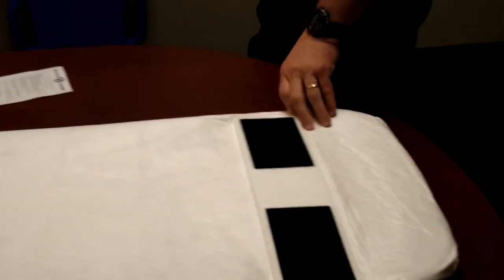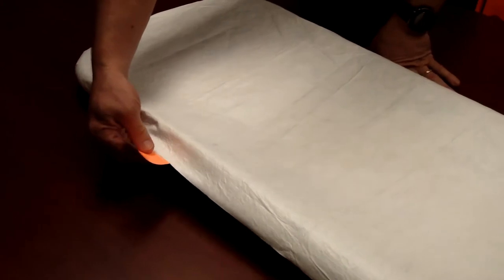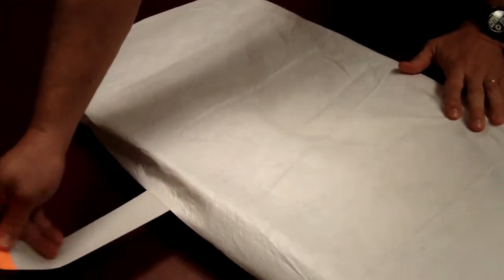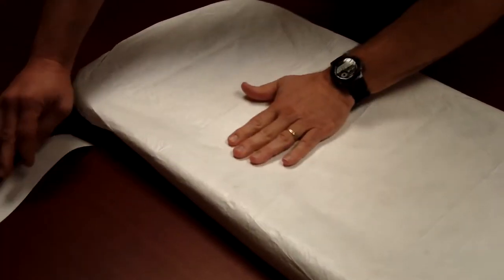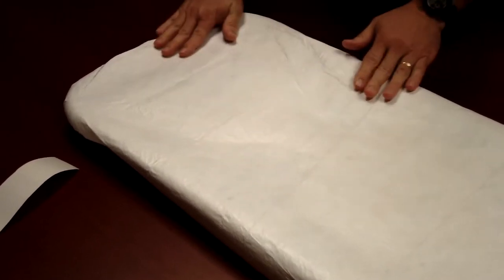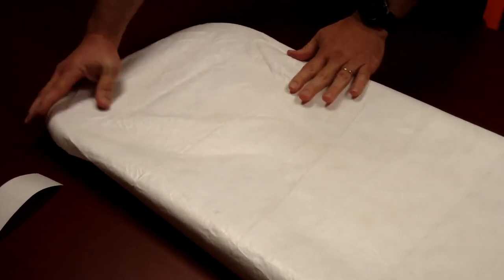Now down at the foot end you have an optional strap right here. You can actually pull this tab as well, which again has another adhesive strip to secure the board cover even more so on the backboard.